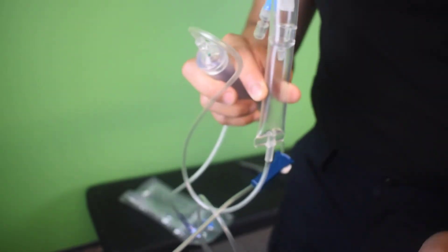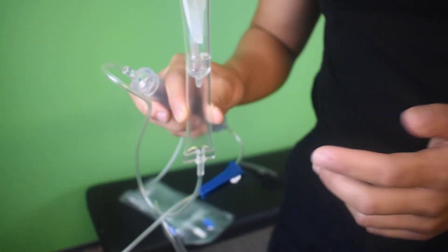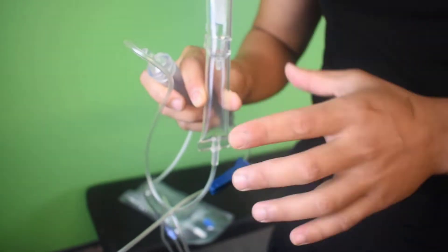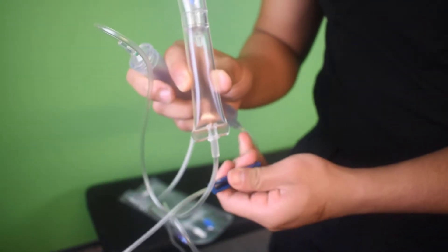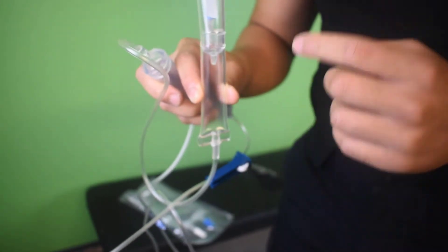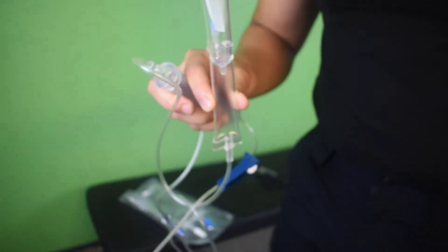So if you're giving a patient, let's just say, only half of a bag of fluids and you notice it's going really fast, like it's flowing non-stop, you can actually slow it down by pushing this halfway or almost closed to have a nice slow drip, and you can almost have a maintenance fluid going on.